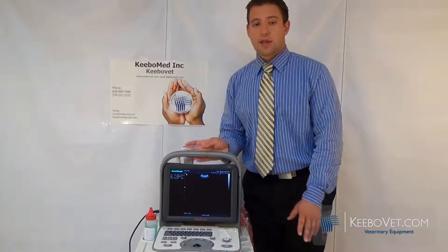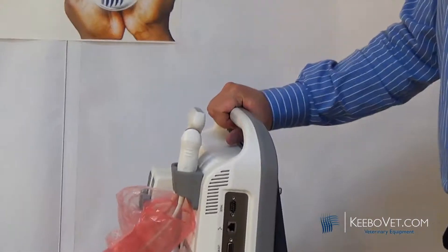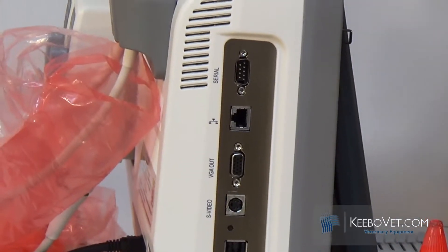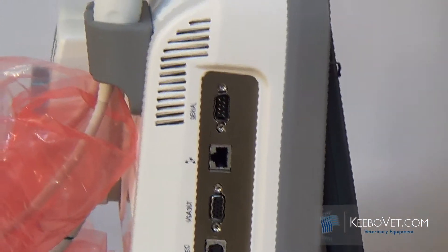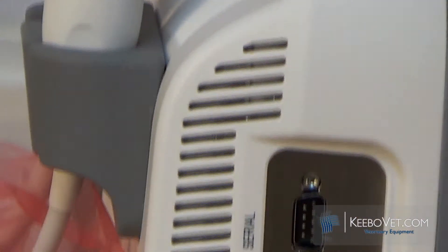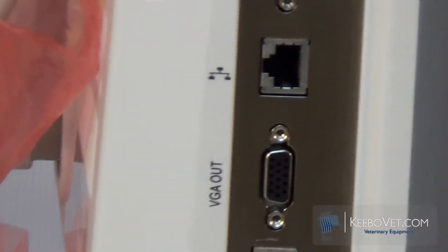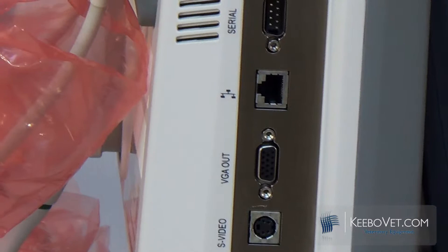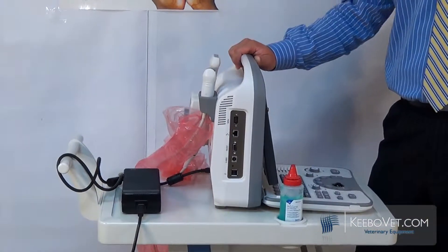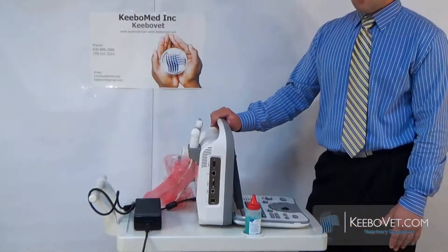Another part that allows you to do a lot of work with this machine is the side access — this is where the hardware functions are. This machine comes with DiCom 3.0 software, which is great for image quality, sending, and saving. We have two USB ports, a VGA video output, and one of the best distinguishing features: one gigabyte of internal storage. Many smaller machines let you save only a few pictures per patient total, whereas ours can store a full gigabyte of images.